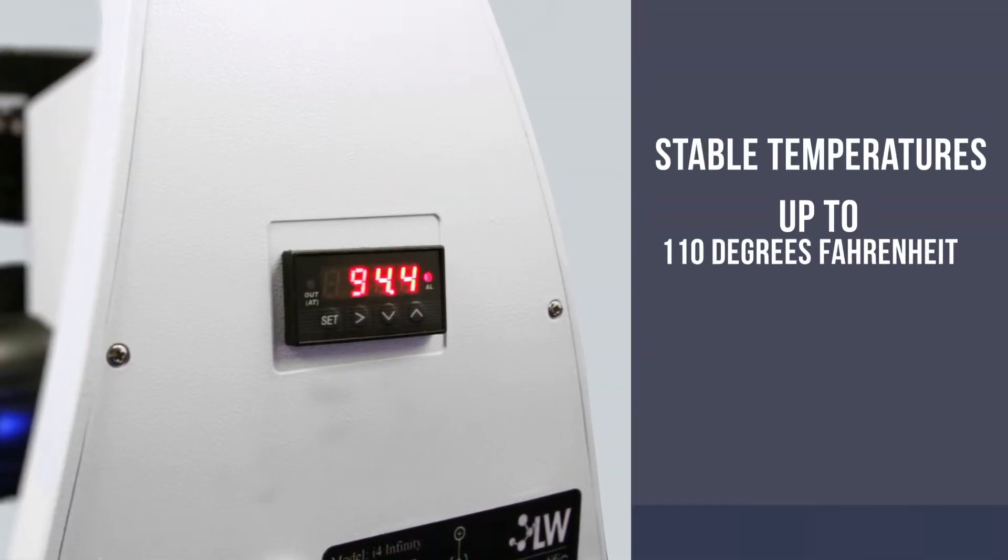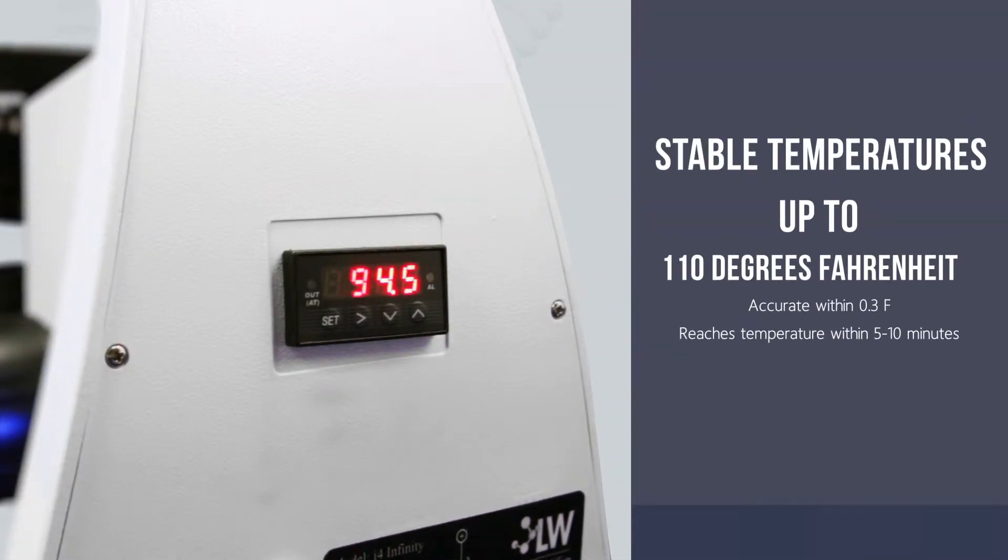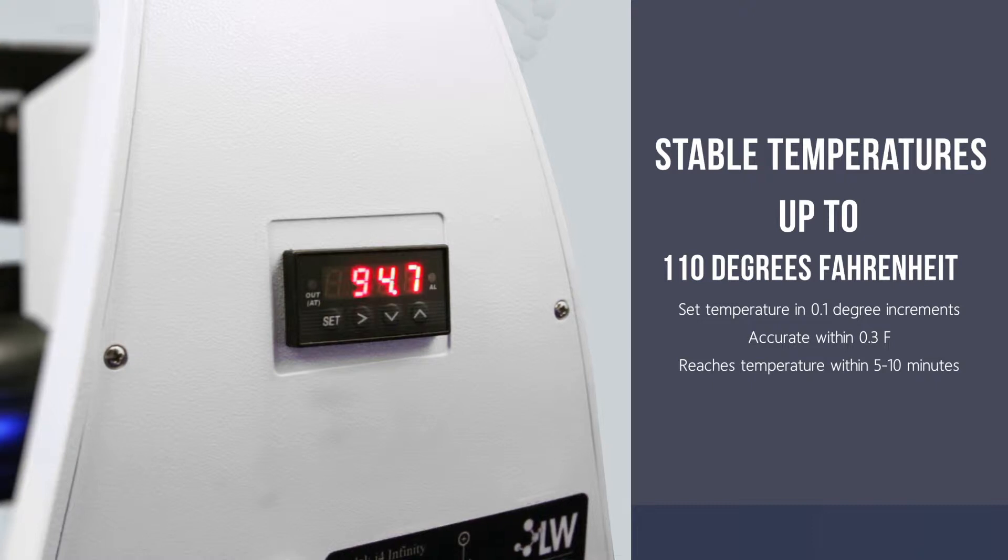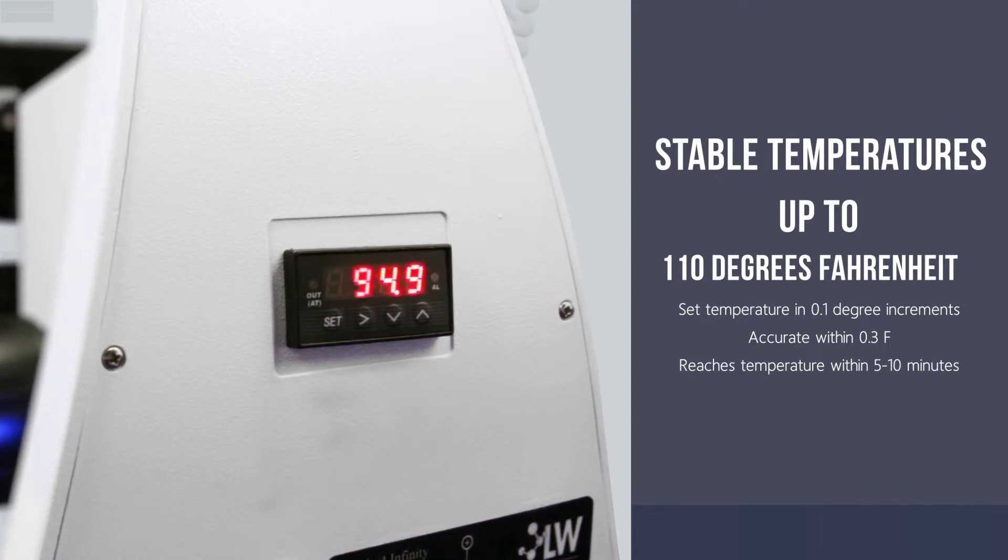Fully integrated temperature controls provide ease of use while ensuring sample viability by evenly distributing heat across the entire stage surface.